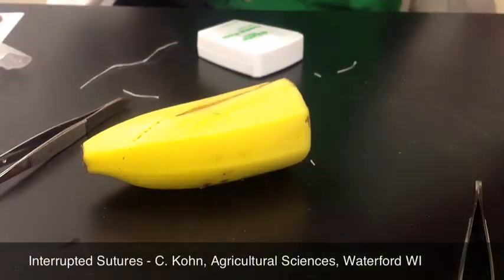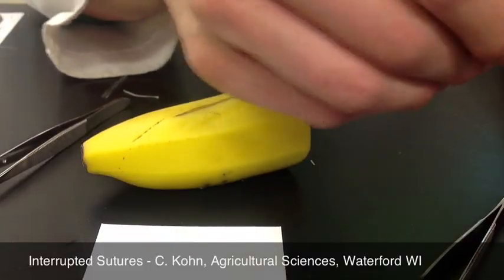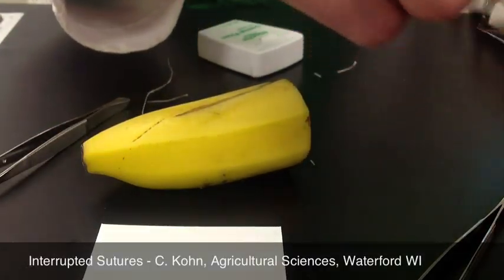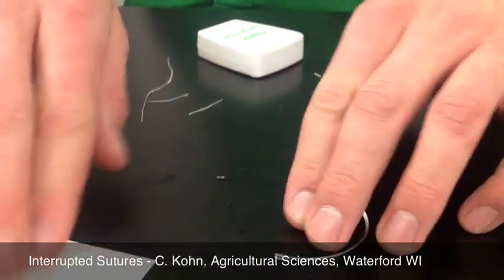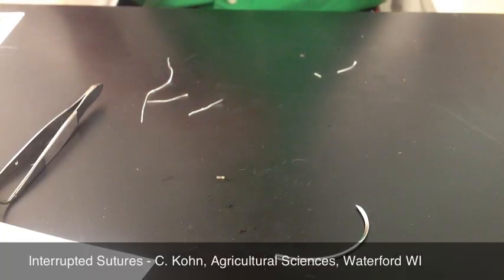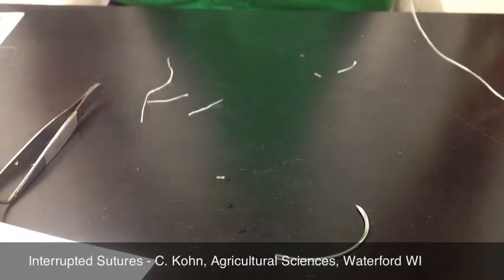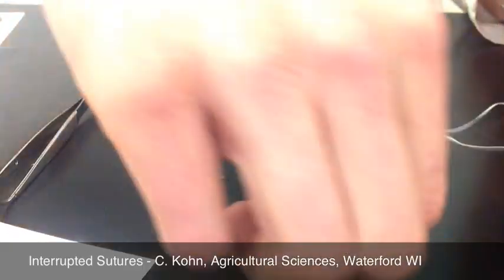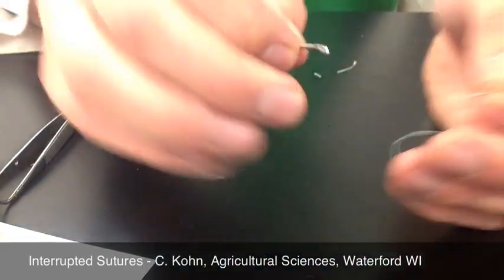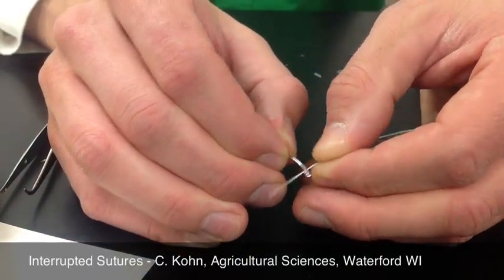So, let's see — if we get a needle, you'll have a whole bunch inside. All you're going to be doing is tying a square knot. Take your needle, you're going to take a length of floss. I usually like to wet down the end a little bit so it's easier to get through the eye of the needle. Sometimes it can be a little bit frayed, and that makes it difficult. Get it through the eye of the needle, like so.